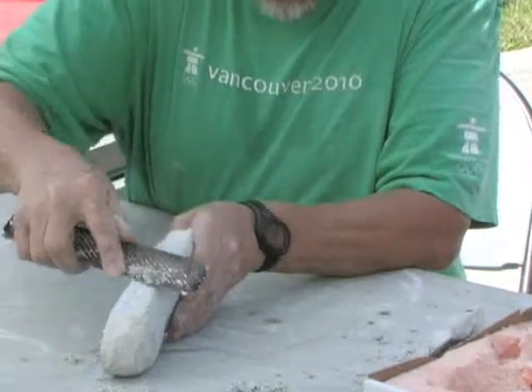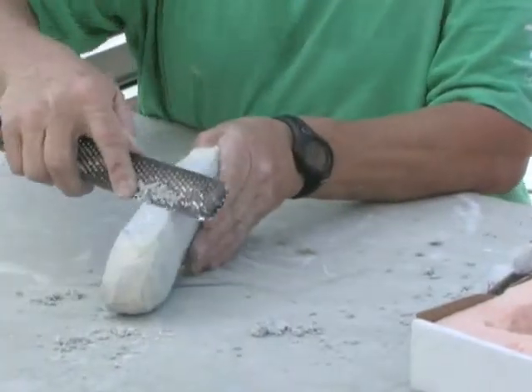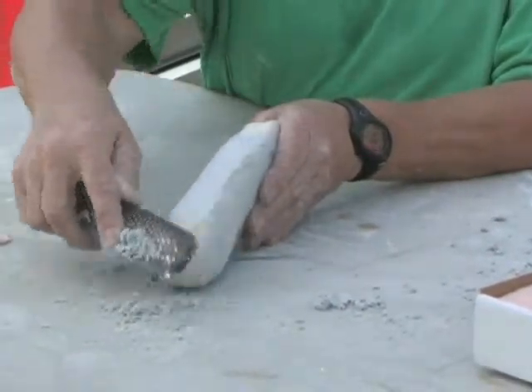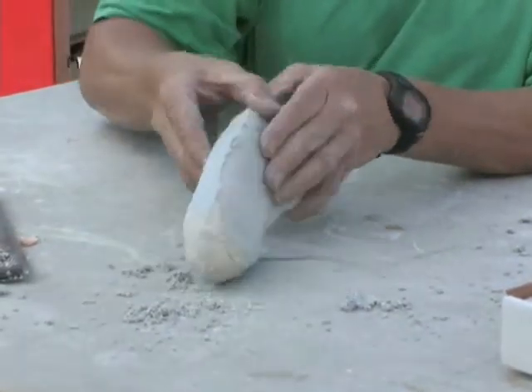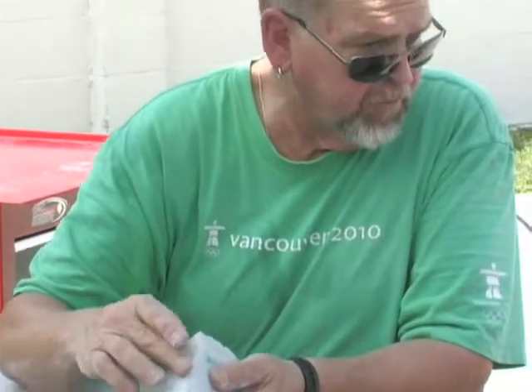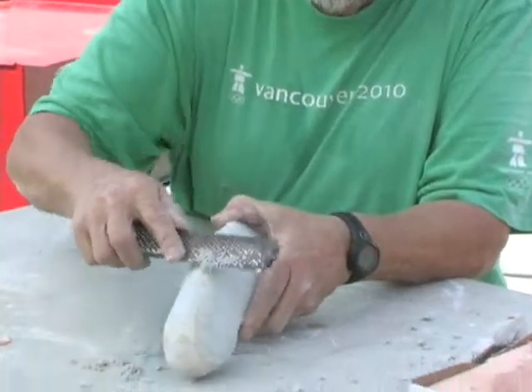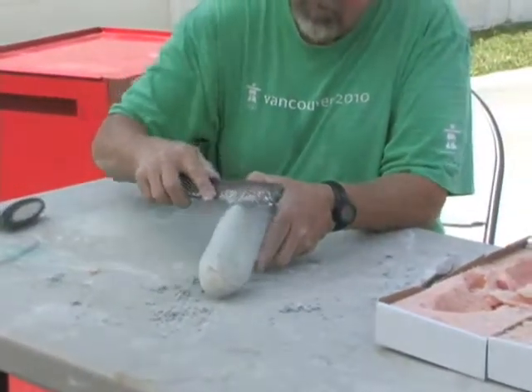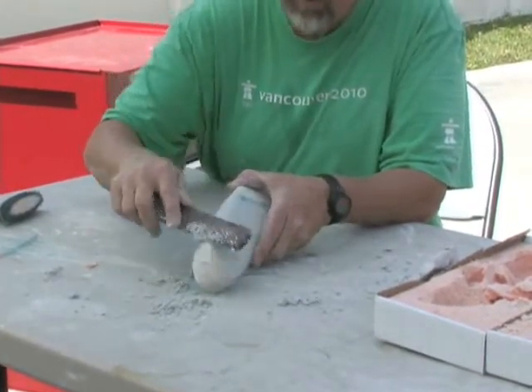You'll notice there's a lot of build-up of plaster along here — that's not your foot. I want to clean this off so that I get all that down to just about where it's now all one layer. Laura, you do not have that sharp abrupt edge on your foot — at least on Wednesday you did not. So what I'll do is I'm just rounding this up gently.